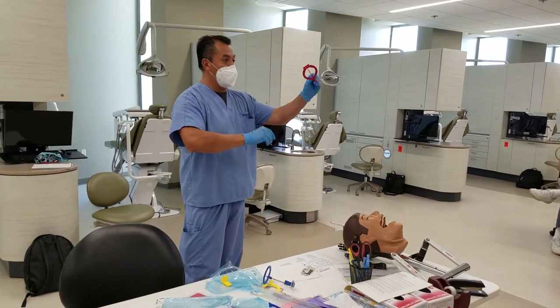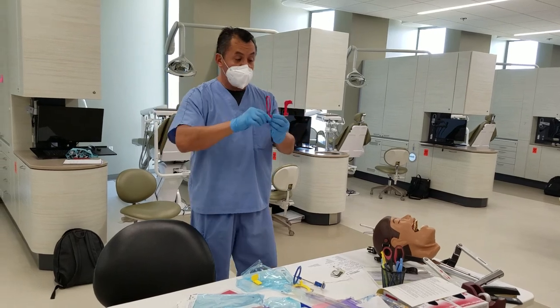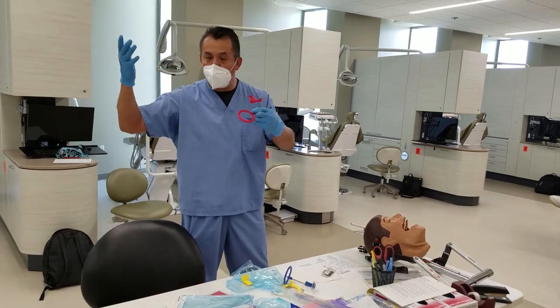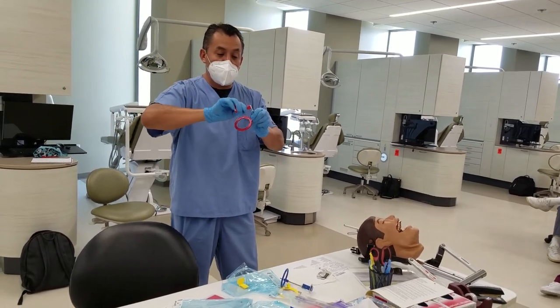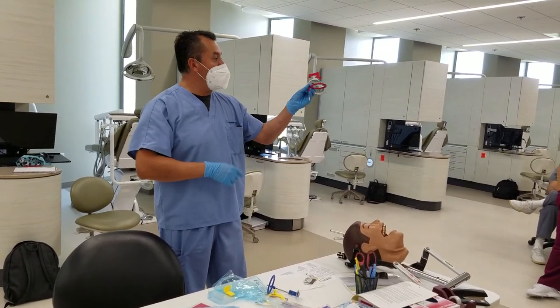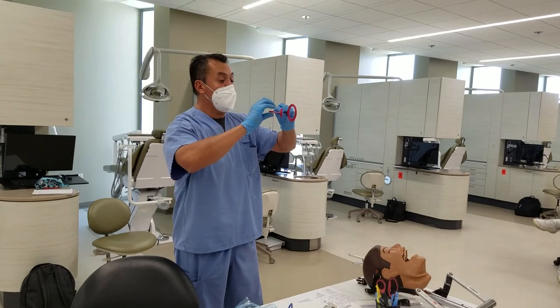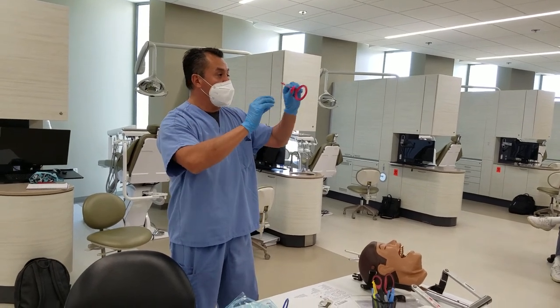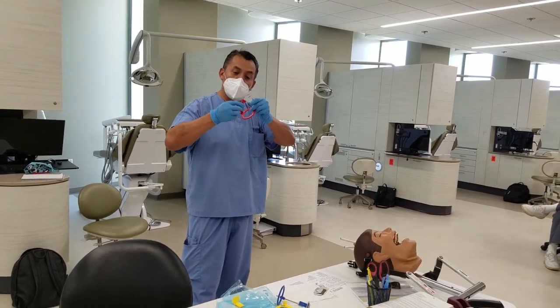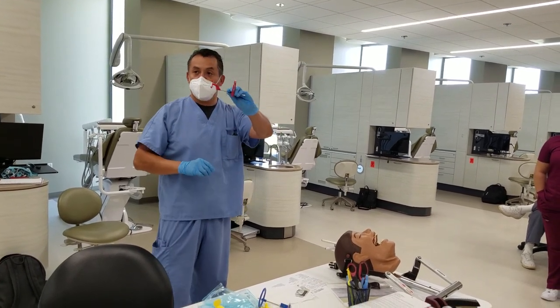Now, this is how it's set up. I want to remind you — remember how the bi-block is set up; it's kind of going out or back depending on how you look at it. I see some students, even months after they've touched this, doing it incorrectly. When you mount it this way, sometimes the patient's bite doesn't match right and it moves. I would not advise you to mount it that way. You'll get a better bite when you turn it out like that.